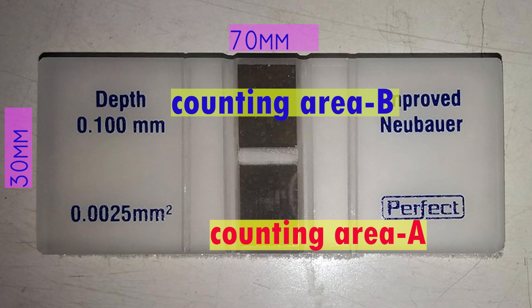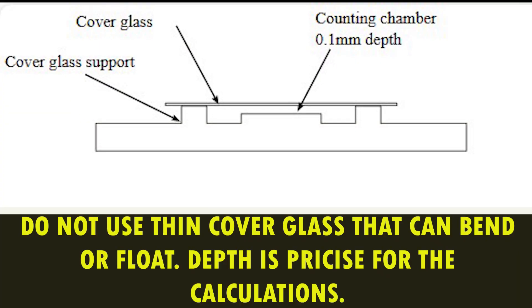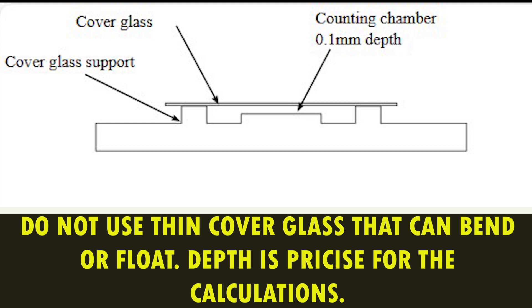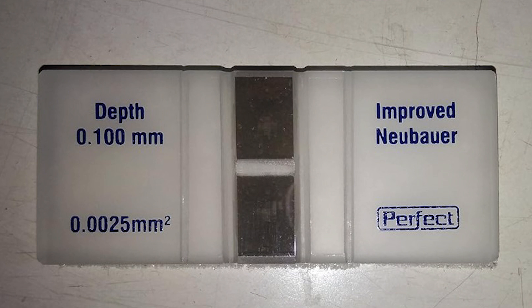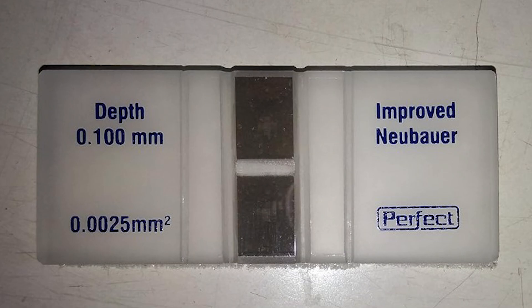The counting grid has been set on the glass with double chambers — two counting areas that can be loaded independently. The glass cover is a square glass of 22 mm width, placed on top of the Neubauer counting chamber covering the center area. The chamber is designed so that the distance between the bottom of the chamber and the cover is 0.1 mm. If extra sample is introduced, the cover may lift and depth increases, causing calculation errors. Most Neubauer chambers used in labs are 0.1 mm depth, but chambers with different depths are available — always confirm the depth is 0.1 mm when ordering, as calculations differ according to depth.